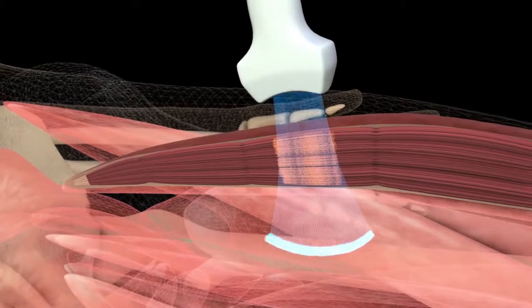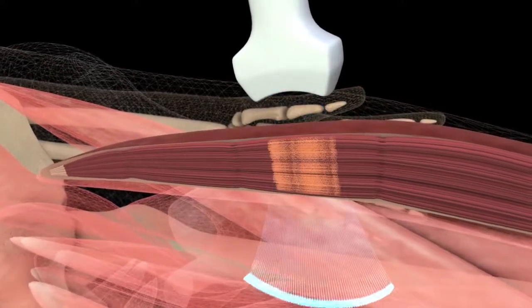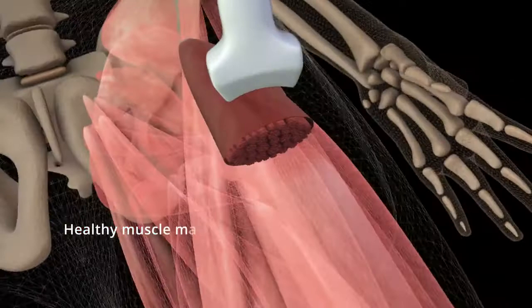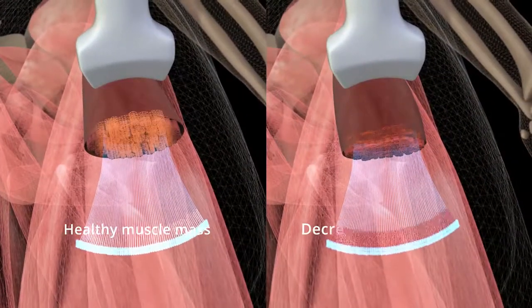REMS will also allow to assess muscle tissue status and detect diseases like sarcopenia by early monitoring the loss of muscle mass.